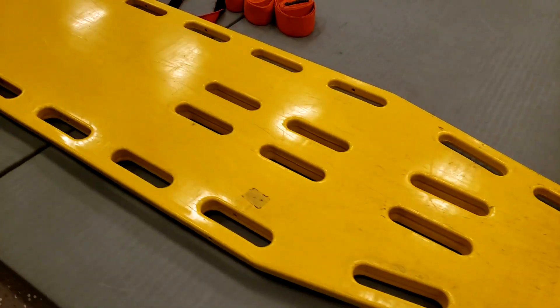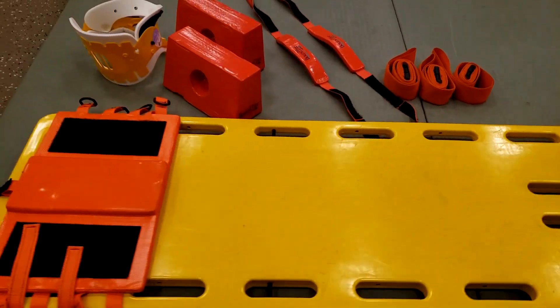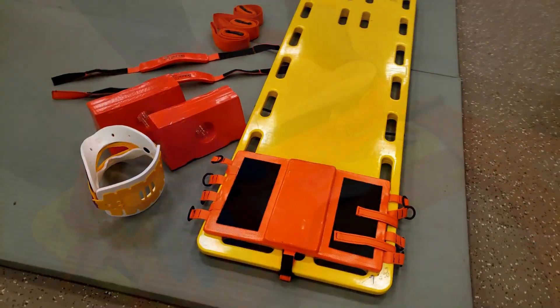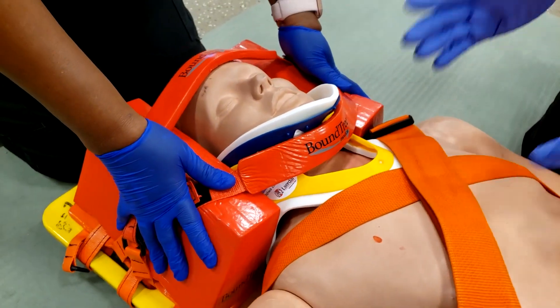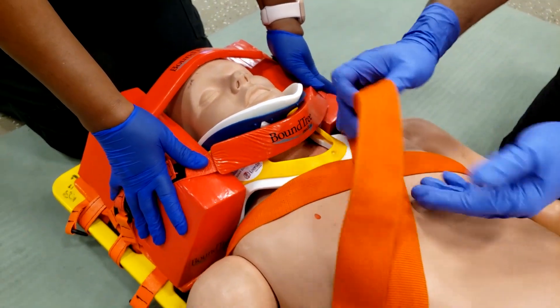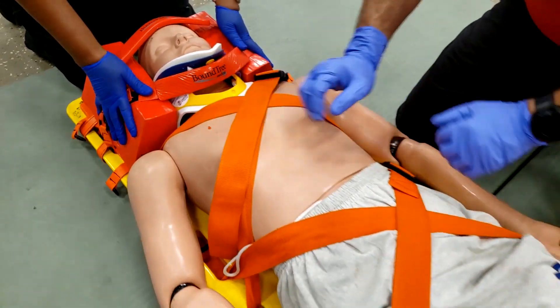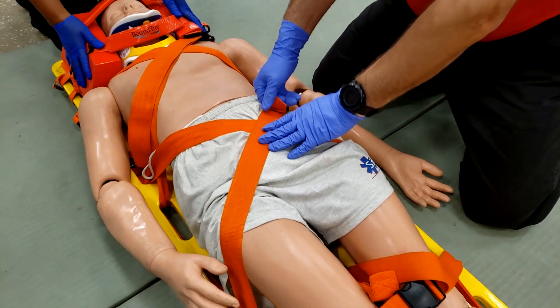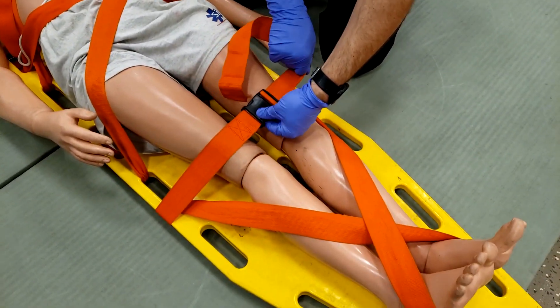Spinal motion restriction is defined as attempting to maintain the spine in anatomic alignment and minimizing gross movement. The term spinal immobilization is defined as the use of adjuncts such as a cervical collar and a long spine board.